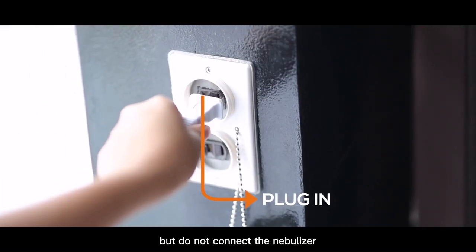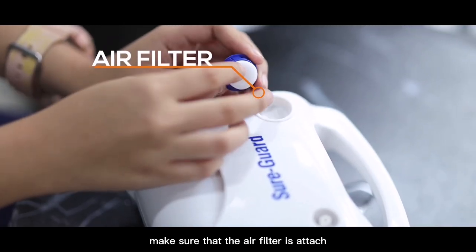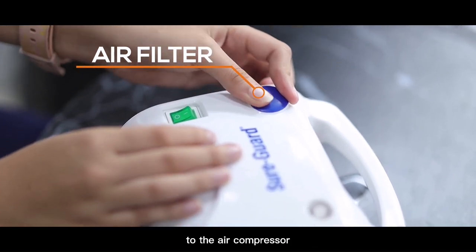Plug in the air compressor but do not connect the nebulizer. Make sure that the air filter is attached to the air compressor.